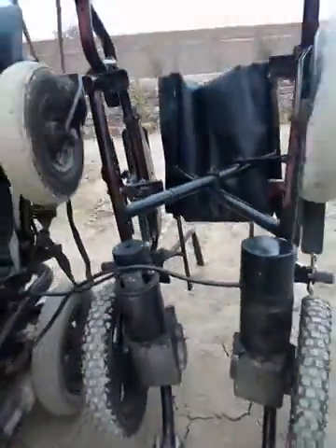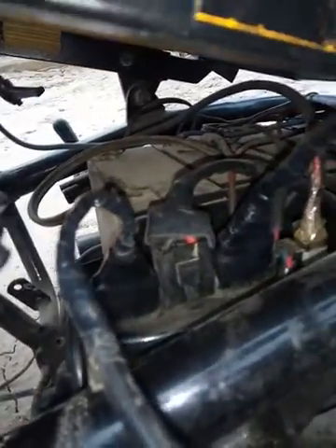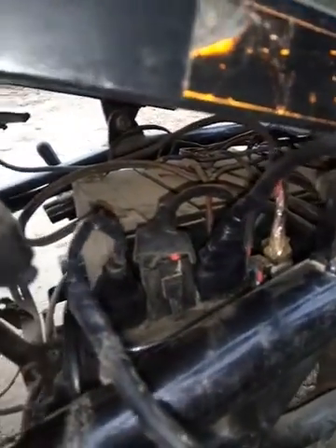We will show you how we repair our power chair. There are two chairs standing side by side — one is okay and one is faulty. I have removed the cable from the faulty one and connected it to the good one, so you can see that the cables of the faulty one are plugged into the good one.